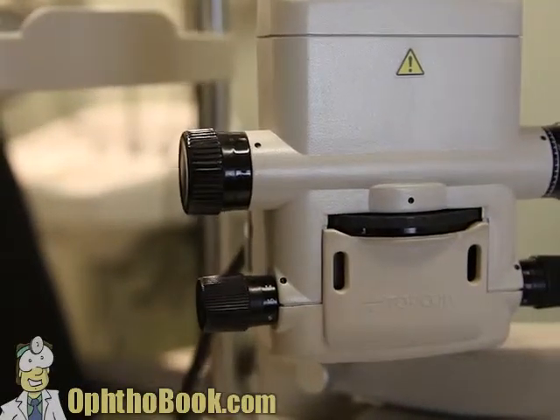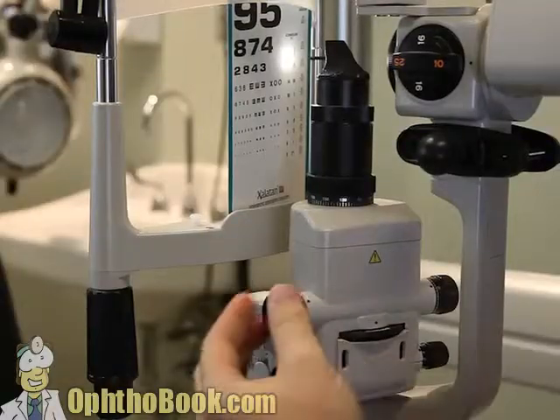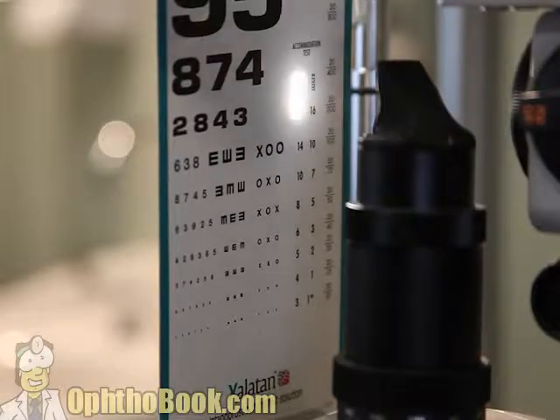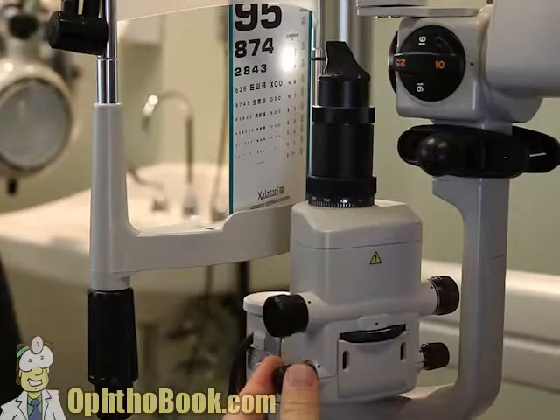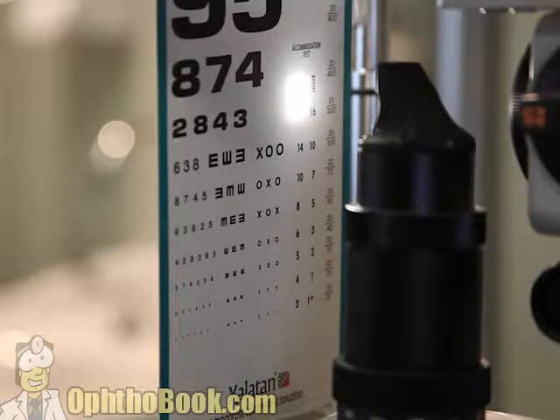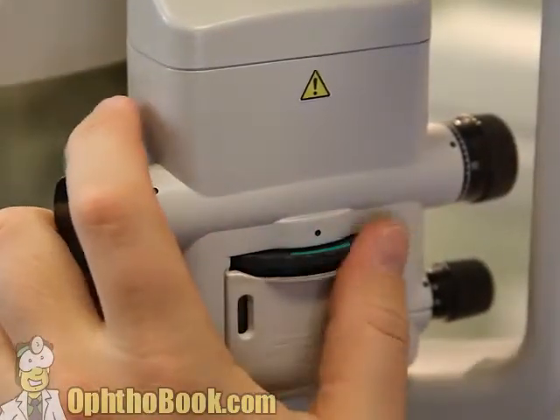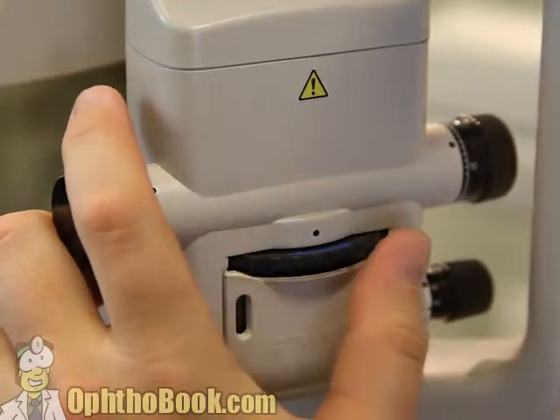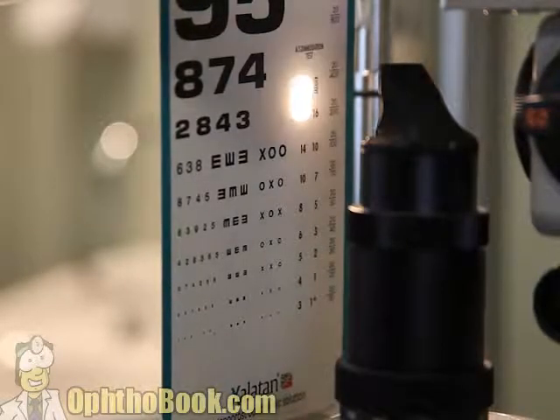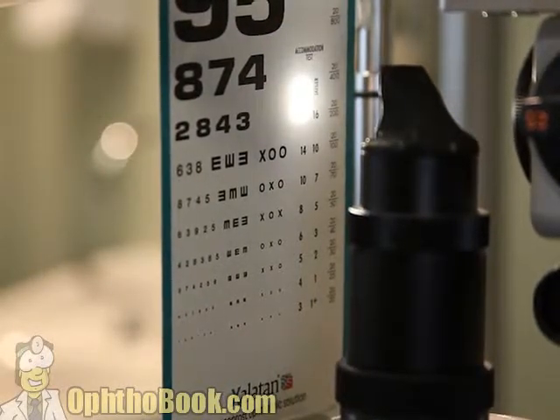Familiarize yourself with the various knobs and dials. One knob controls the width of light — probably the most useful control on the entire assembly. Another controls the height, which is very helpful when measuring the size of objects. Then find your various filters: we've got green, white, and of course the blue light, which we use most often.